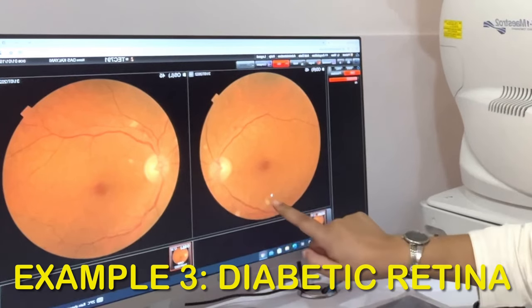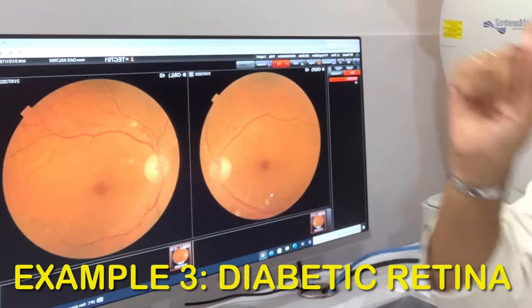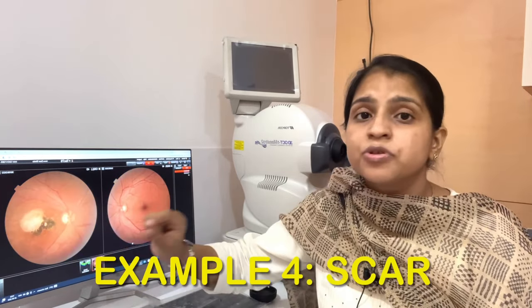What kind of scar it was — this is another photo. You can see here there are some yellow spots. These yellow spots are in the early stages of diabetes. So if we don't have this photo, next time we won't know whether, because of diabetes, the effects are increasing — depending on how you are controlling your diabetes or not. We need to have these reports for documentation.